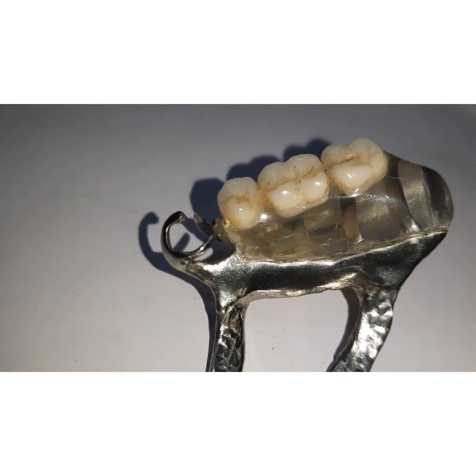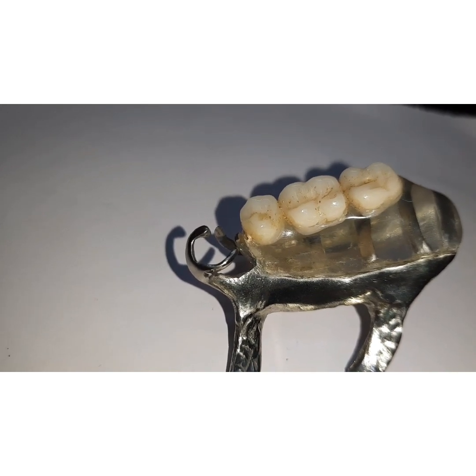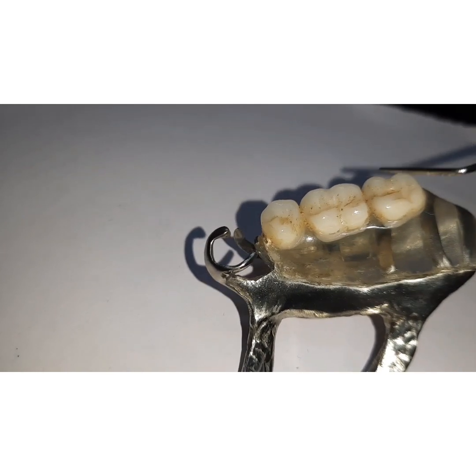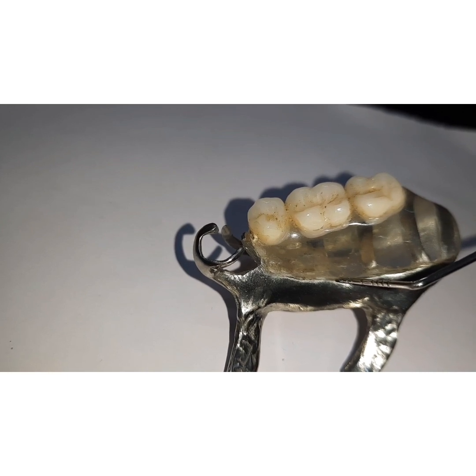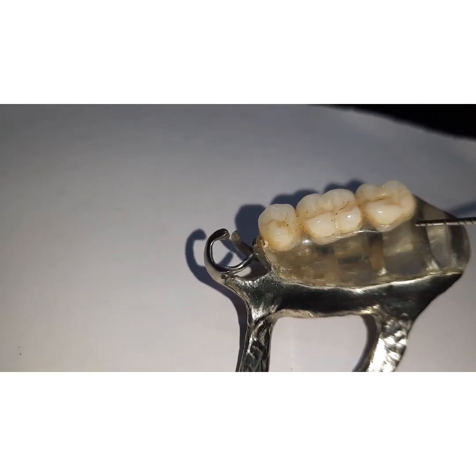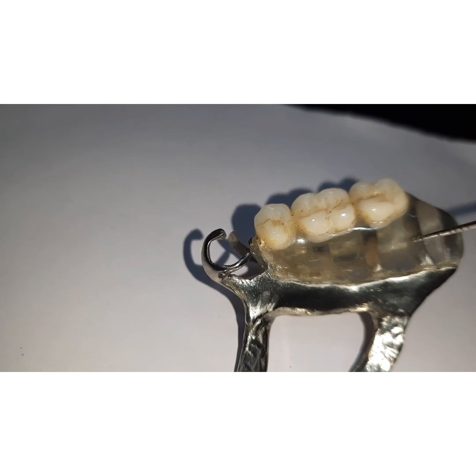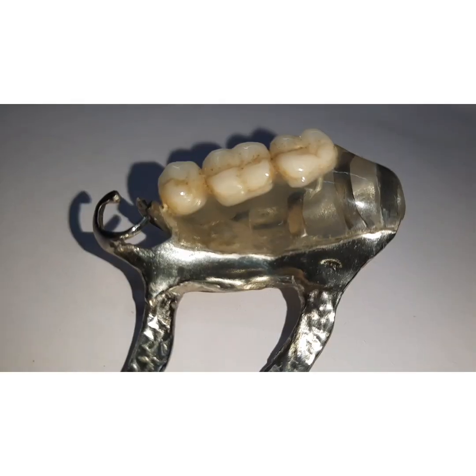The external finish line should be sharp and well defined, and it should also make a butt joint so that you have ample space for the acrylic resin to come. If you do not have sufficient space for the acrylic resin, the chances of the resin fracturing are very high because this area is subjected to a high amount of functional stresses. The butt joint requires creating an undercut at this junction, and this undercut should make an acute angle — slightly less than 90 degrees — so that enough space is there for the acrylic resin. This ensures a good thickness of acrylic resin binds and holds the resin into the framework; otherwise, chances of dislodgement of the teeth and the framework are highly possible.